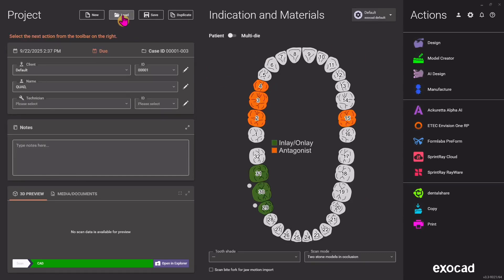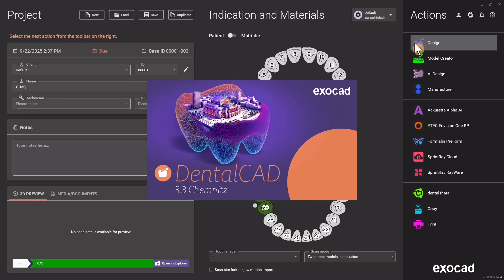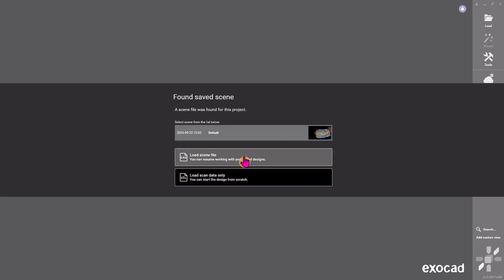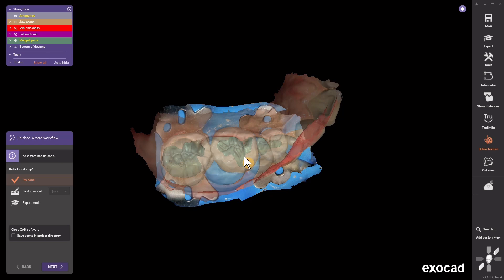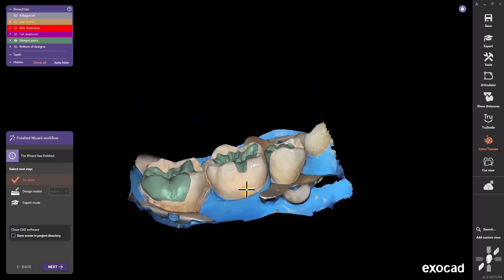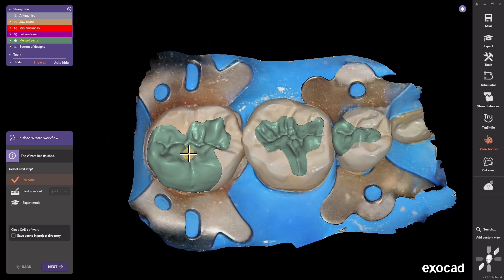Getting a lot of questions about how to modify designs that have already been completed in exocad. Let's say you forgot to do something in a step and it doesn't fit or doesn't look good — you want to go back to that original design. Find that case, hit Design, then Load Scene File, and it's going to take you all the way to the end of the design. It'll take you to the merge and save step, and you can see the green finished restorations.